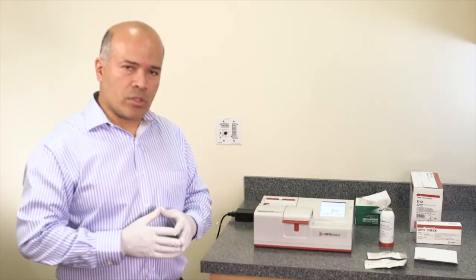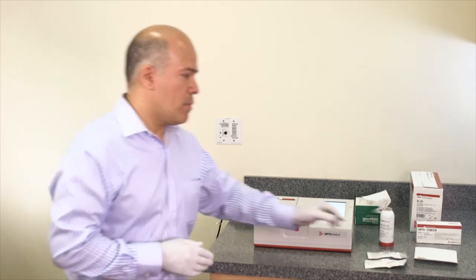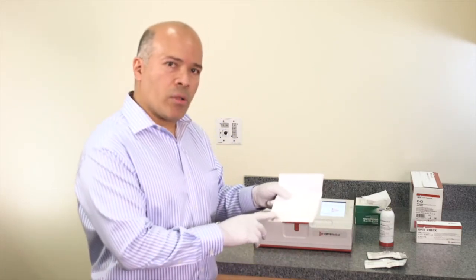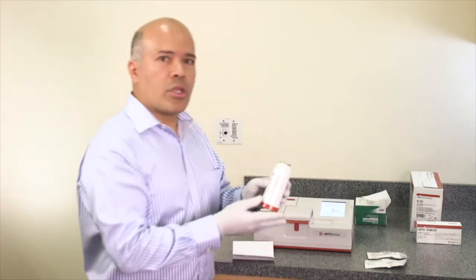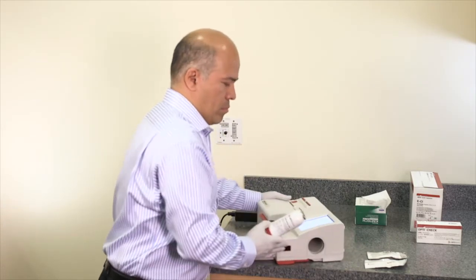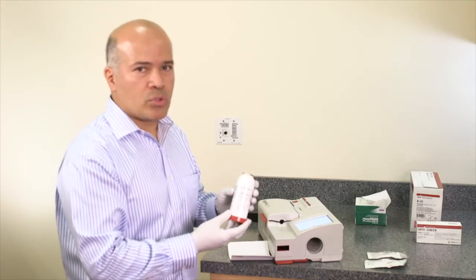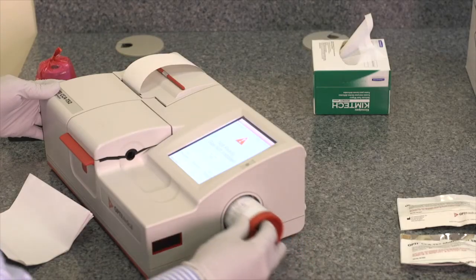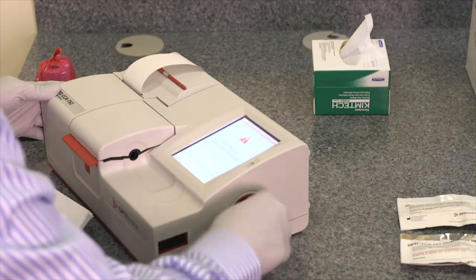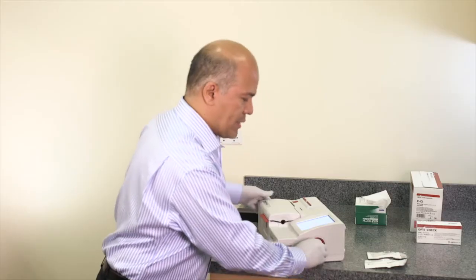To install the gas bottle, the barcode and the gas bottle are needed. The barcode comes with the bottle, and the gas bottle is inserted on the side of the analyzer. Once the instrument prompts to install the gas bottle, insert it and rotate clockwise until it is tight.